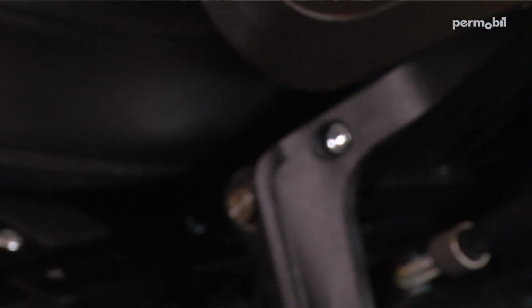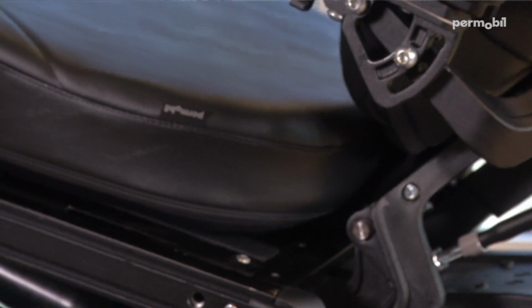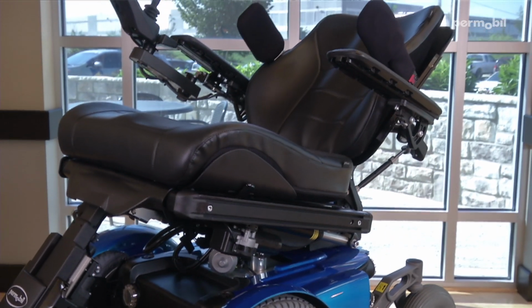One important thing to note regarding Permobil's memory feature is that the memory function can only be stored on positions that use smart actuators and actuators with positioning sensors. A good example of this is the Corpus 3G seating system. The power legs, power tilt, and power recline all use our smart actuator. Therefore, we can reserve the position in the memory of all 3 of those functions. However, actuators such as the elevator use switches for positioning, and we cannot recall the specific position of the seat elevator.